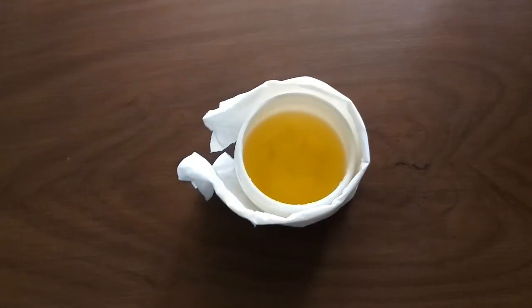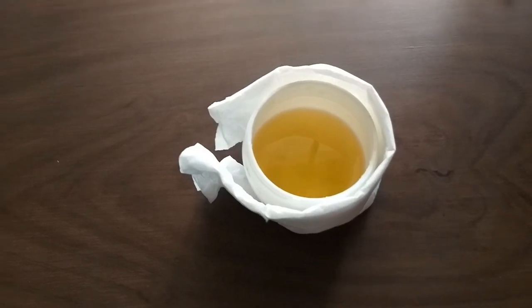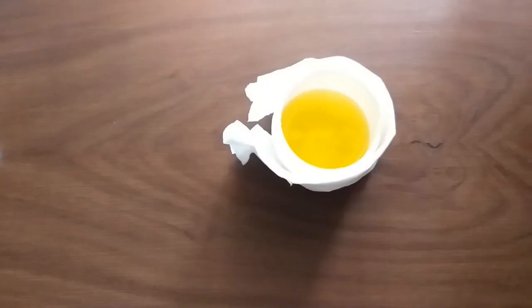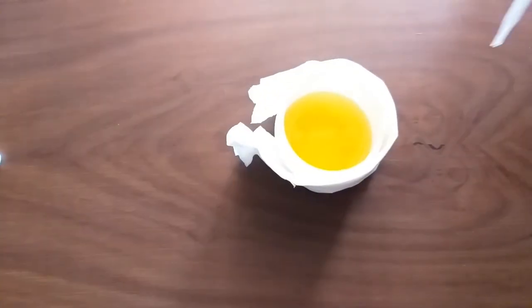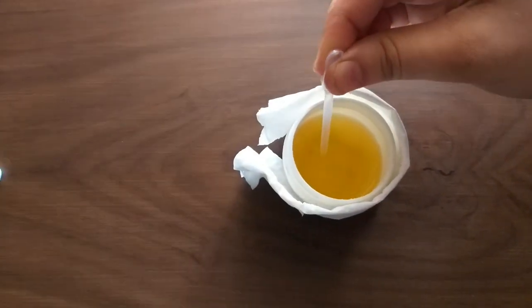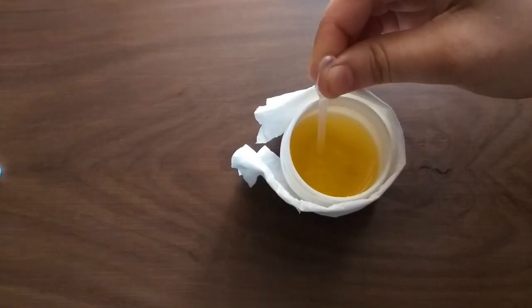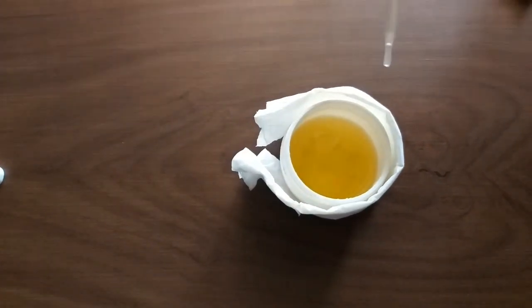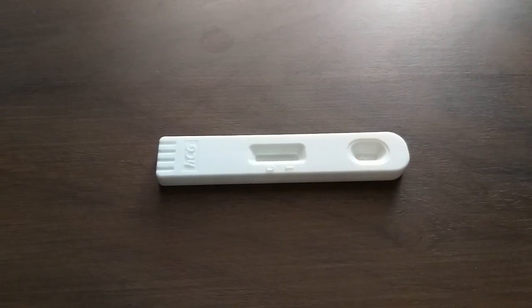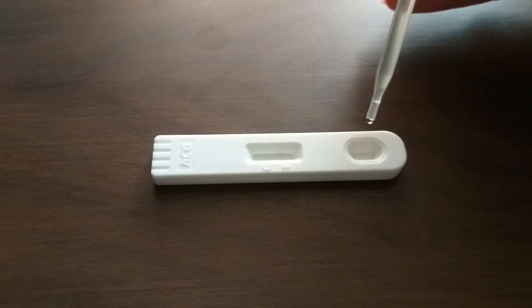Now you will collect urine in some container from the lady whose home pregnancy test you want to do. Then fill the dropper with the urine and put 3 drops onto the Pregnancy Test Kit.